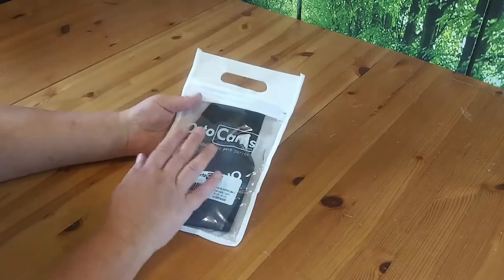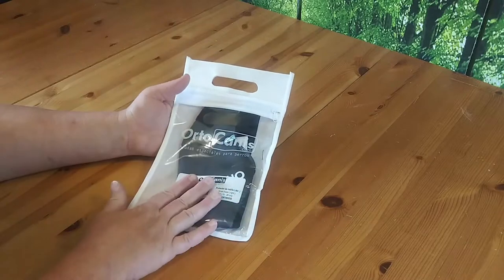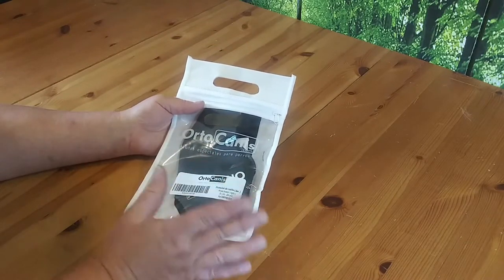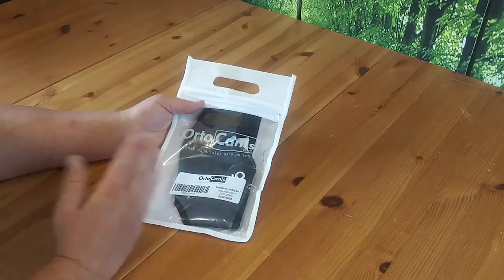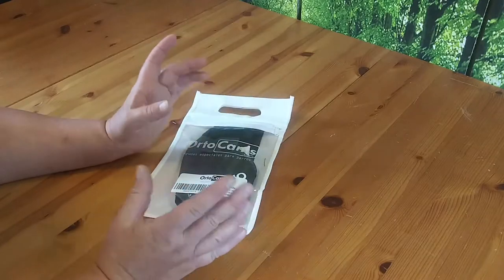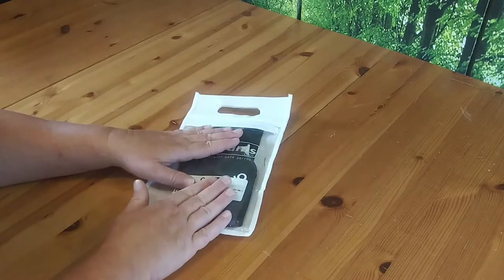On a budget made easy, we're taking a look at the Orthos Canis knee brace. I got this off Amazon for 50 bucks. They have all different sizes and they have them for the right and the left. I got Blue Dog a small one — he tore the ligament in his knee, so we're going to go ahead and try this.